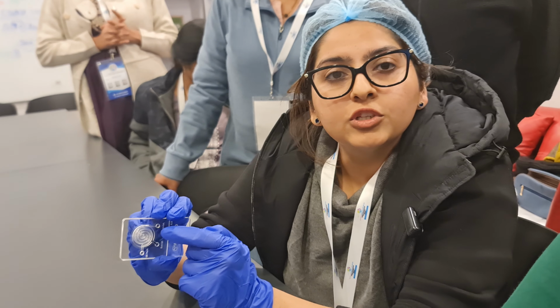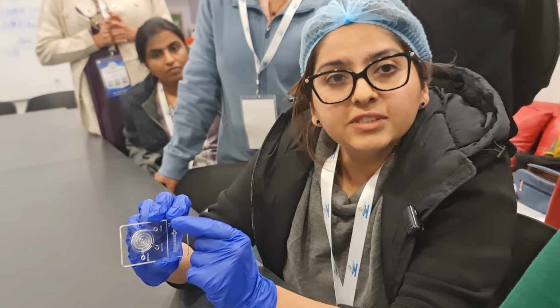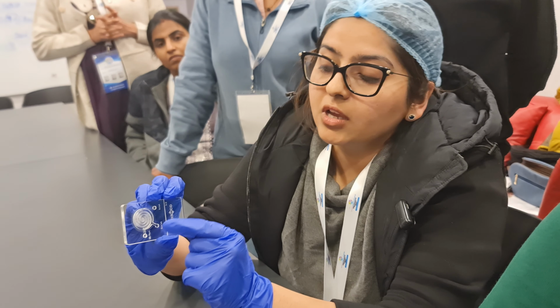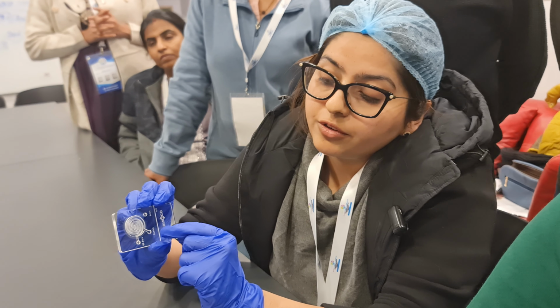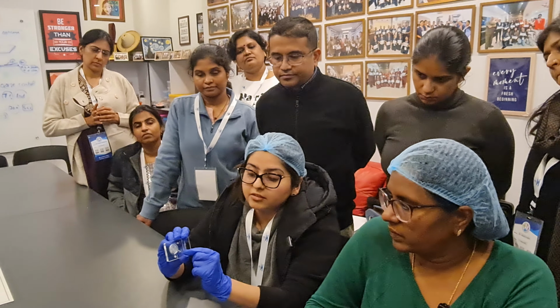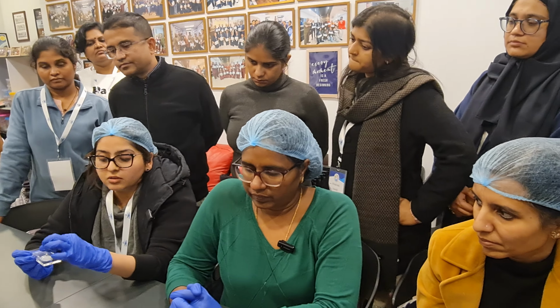The process of doing sorting is by pushing 850 microliter of raw semen sample through the inlet port till the sample reaches the OB port. So this sample goes under the membrane. Thereafter, from the outlet port, we push around 2 drops of media, and thereafter we spread the media over the membrane.